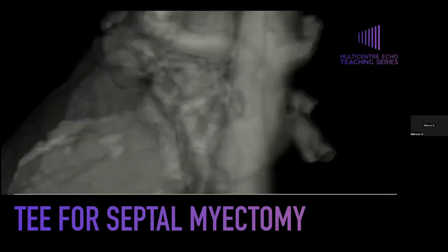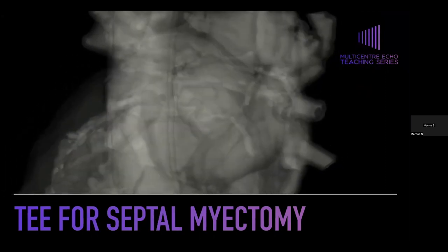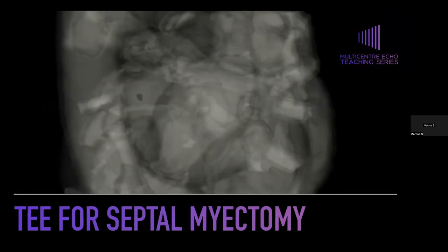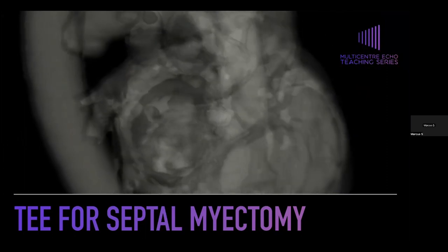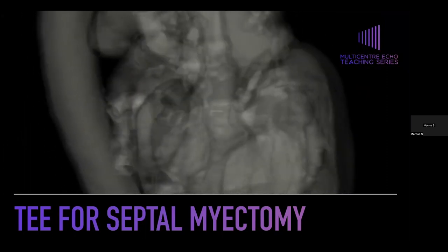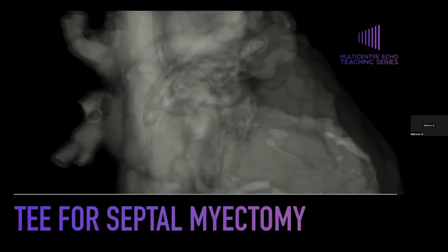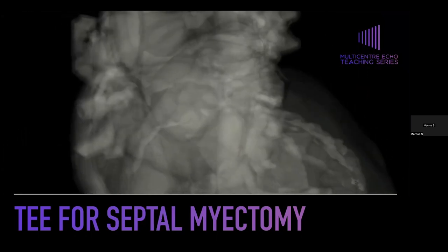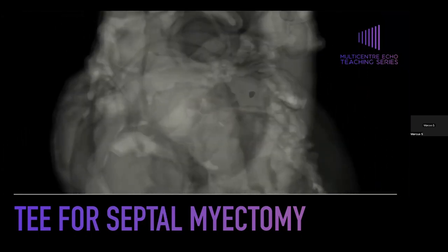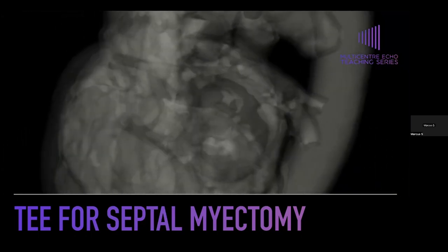Hi again everyone. My name is Marcus Salvatore and I'm an anesthesiologist and CVICU attending at Toronto General Hospital with an interest in perioperative echocardiography. Today we'll be talking about TEE for septomyectomy with a focus on intraoperative decision making.